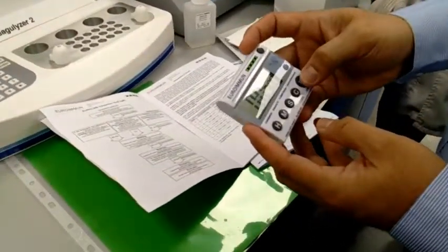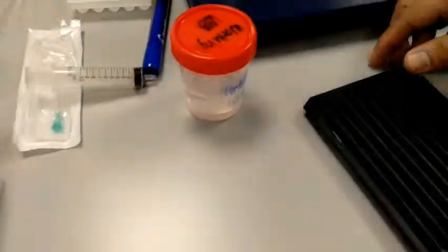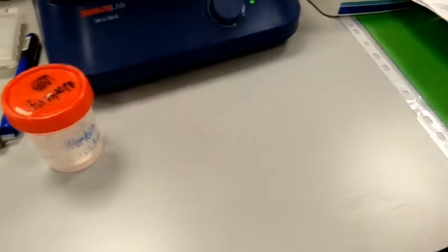5 minutes. Then put it here. We will keep the remaining inside the refrigerator.